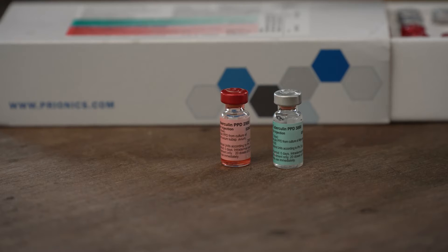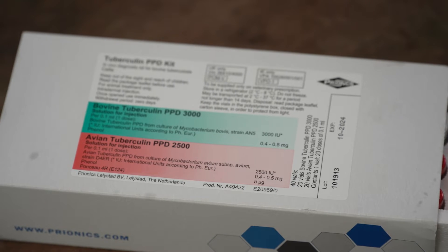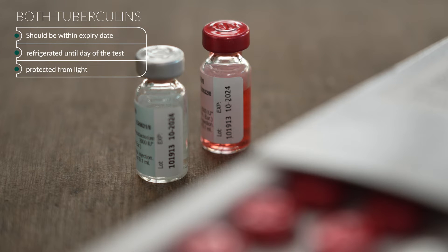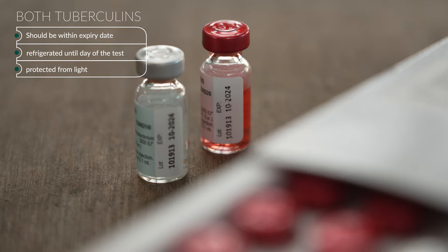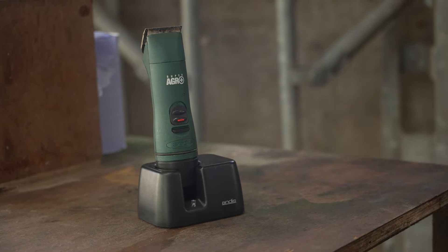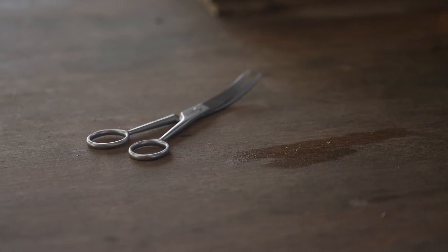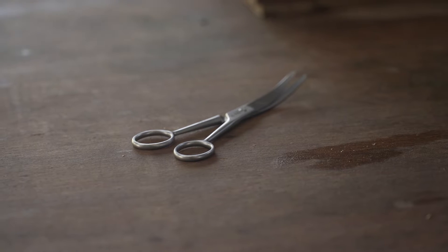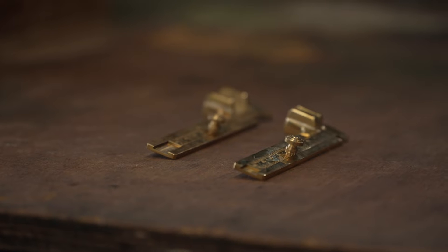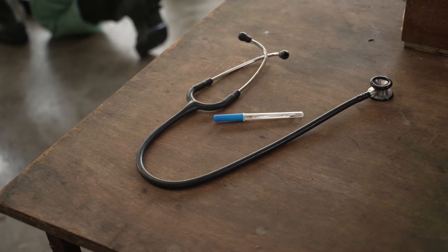Avian and bovine tuberculin are matched in terms of their potency and are packaged in the same box; only tuberculins in paired tuberculin kits can be used. Both tuberculins should be within their expiry dates, refrigerated until the day of the test, and protected from light until required for use, as failing to do so can affect the integrity of the test. Also required is a suitable clipping device for preparation of injection sites. It is strongly recommended that electric clippers are used in preference to scissors. Two calipers — one for use and one for backup — plus a thermometer and stethoscope for clinical examinations should also be carried.